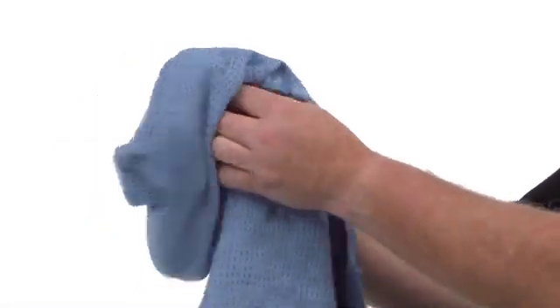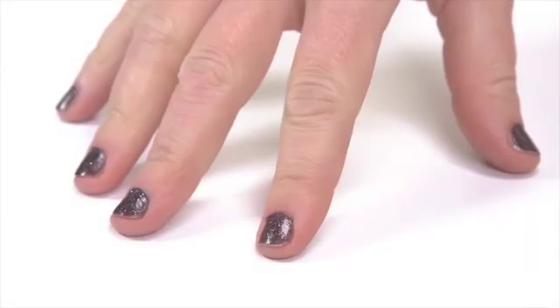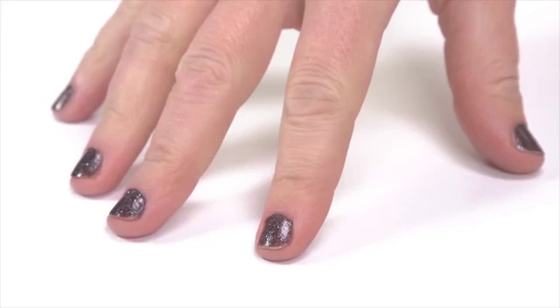Wash and dry the hand where the sensor will be placed. Heavy lotions, sunscreens, oils, dirt, and fingernail polish or artificial nails may alter the accuracy of the sensor, so start with a clean, dry finger.